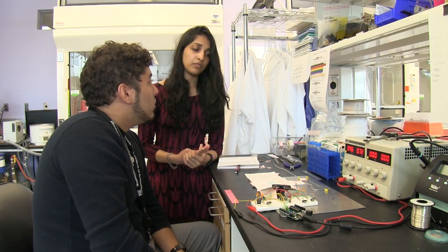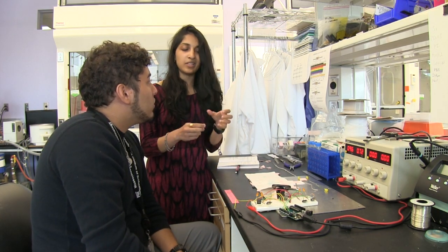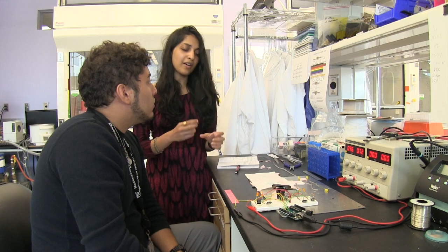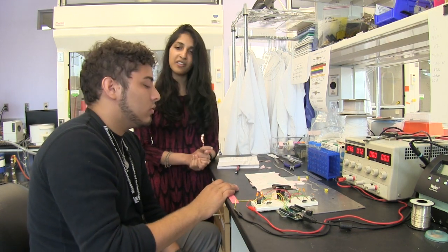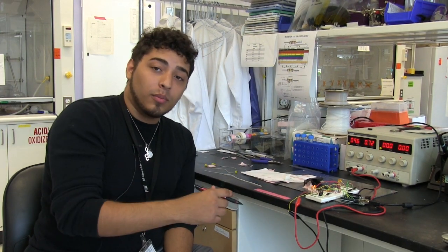That's actually very important for when we're building prototypes. We want to take apart every little piece and think about how we can make this part better and that part better, and then at the end we can put it all together. What we're trying to achieve here is get the setup to be as small as possible, and this is very important because the type of work that we are doing requires the pump to be implantable — so that's our main target here.